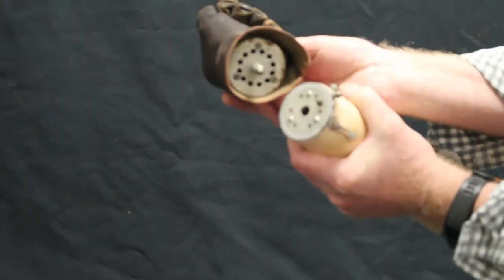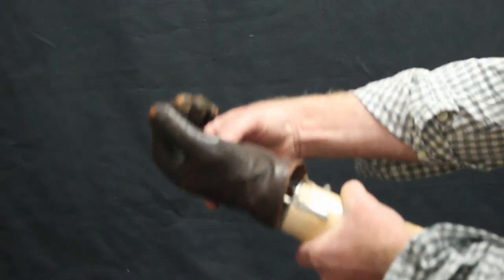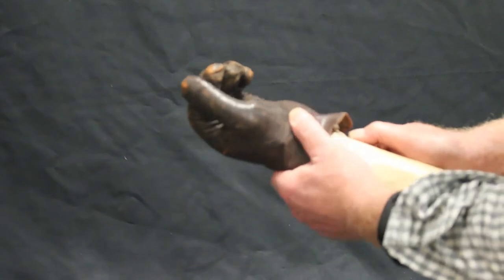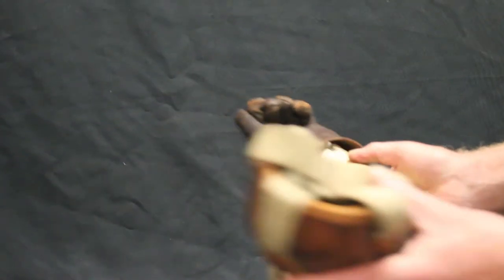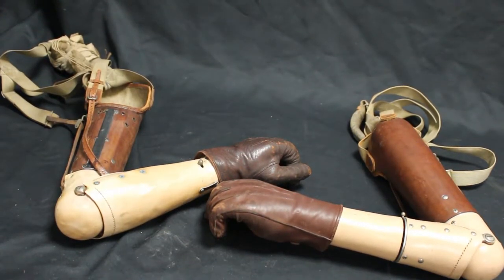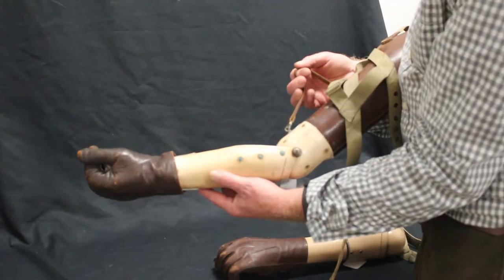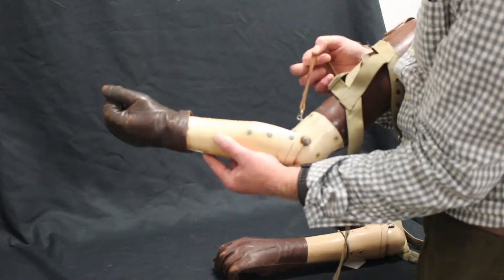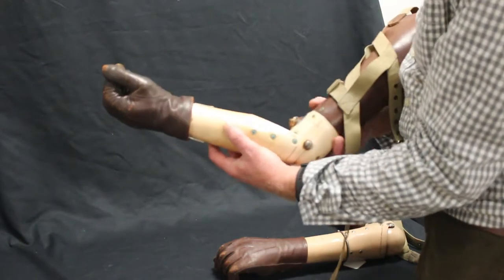This particular arm has some form of articulation via these lever clips, which you can rotate, but only to fixed positions. It will clip back into place. There is also a lever just before the bend of the elbow which controls the extension of the arm again to two or three fixed positions.